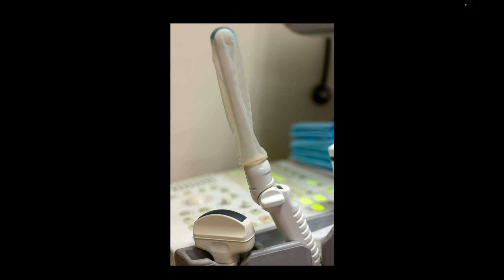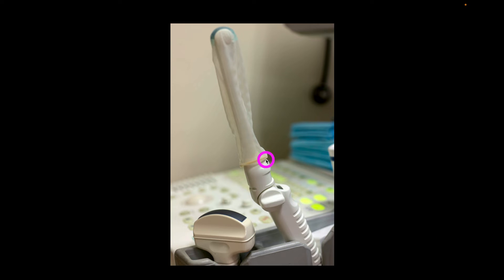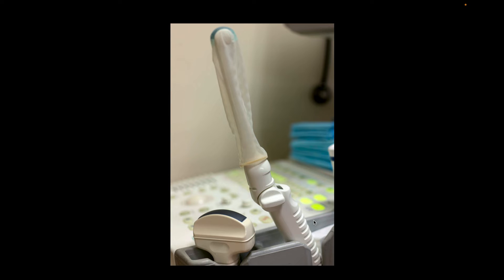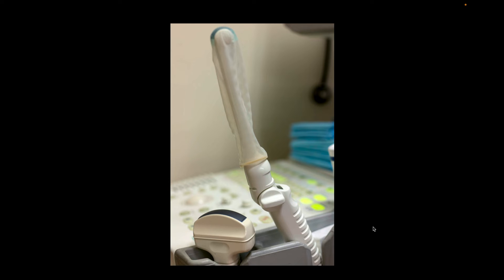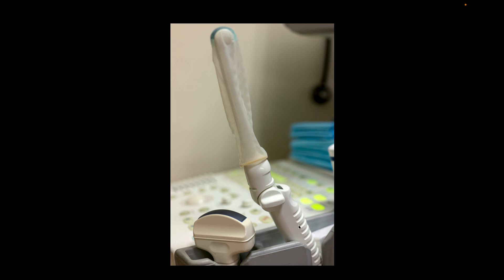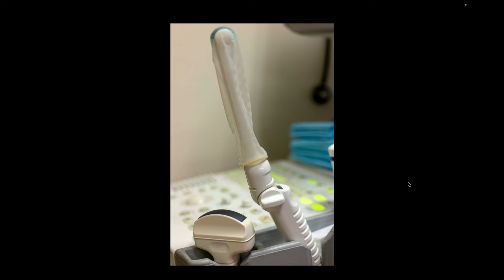That was all using the curvilinear transducer. You definitely can use the endocavitary transducer as well — that's the one we're seeing here. It's typically a little more useful in an early pregnancy or in a non-pregnant patient. It is a high-frequency transducer and typically will give you a better view. It is important to make sure that you cover it with a transducer cover specifically made for these endocavitary probes, and then make sure that you are following your local guidelines for cleaning these endocavitary transducers once you're done.